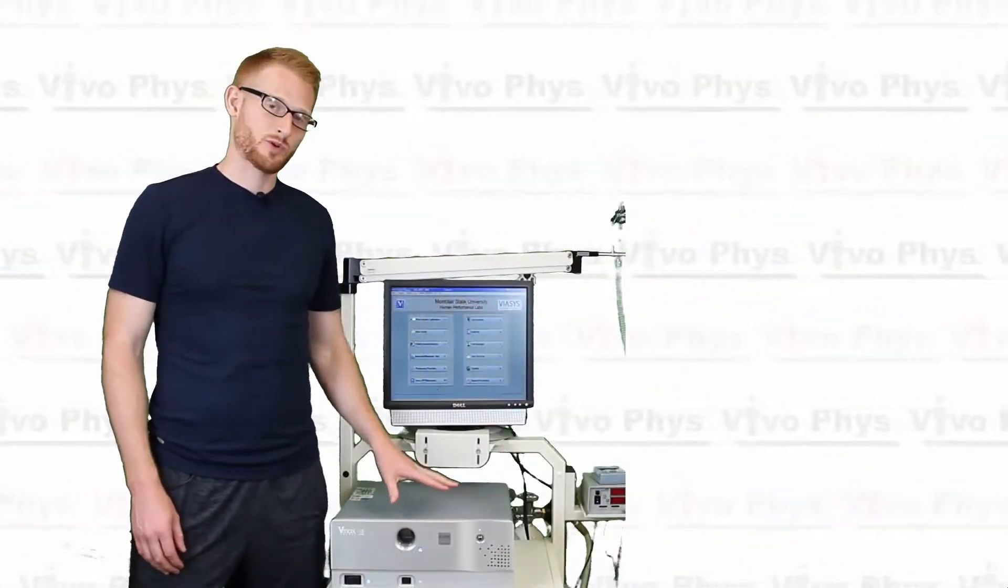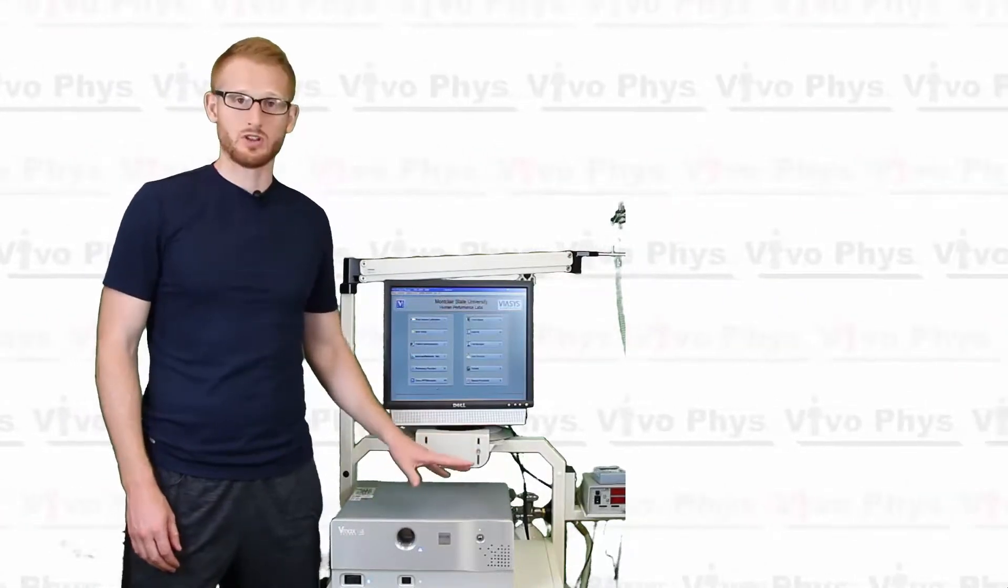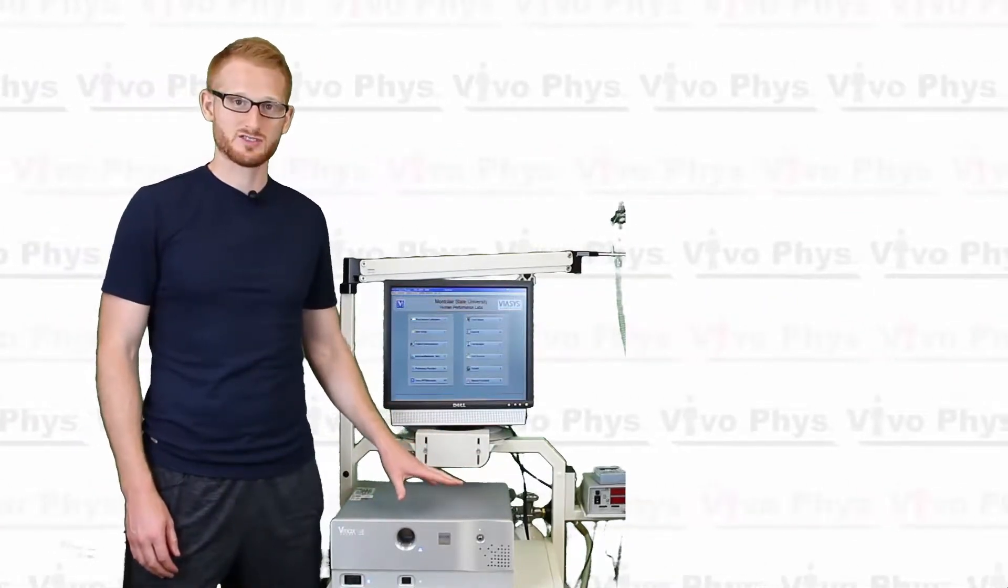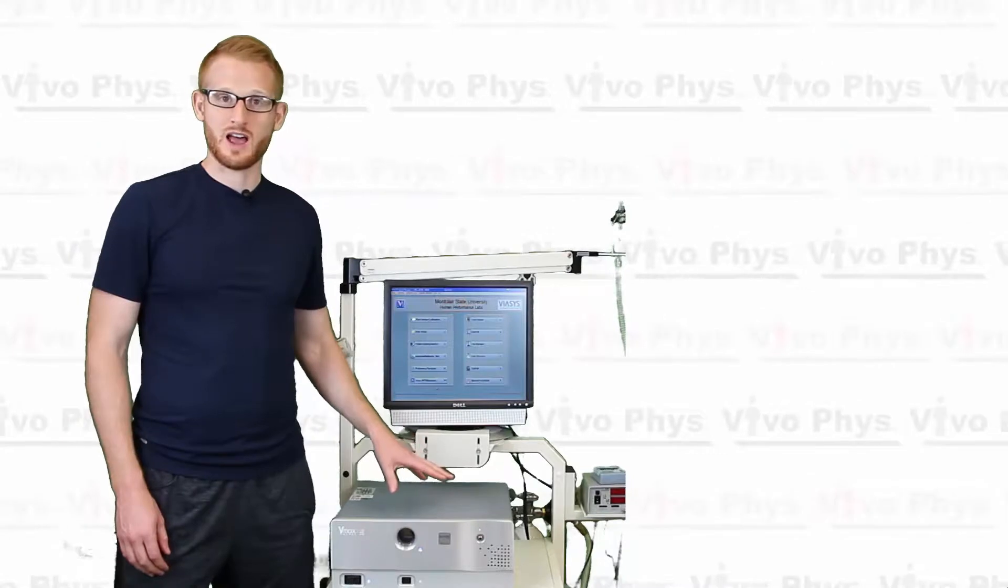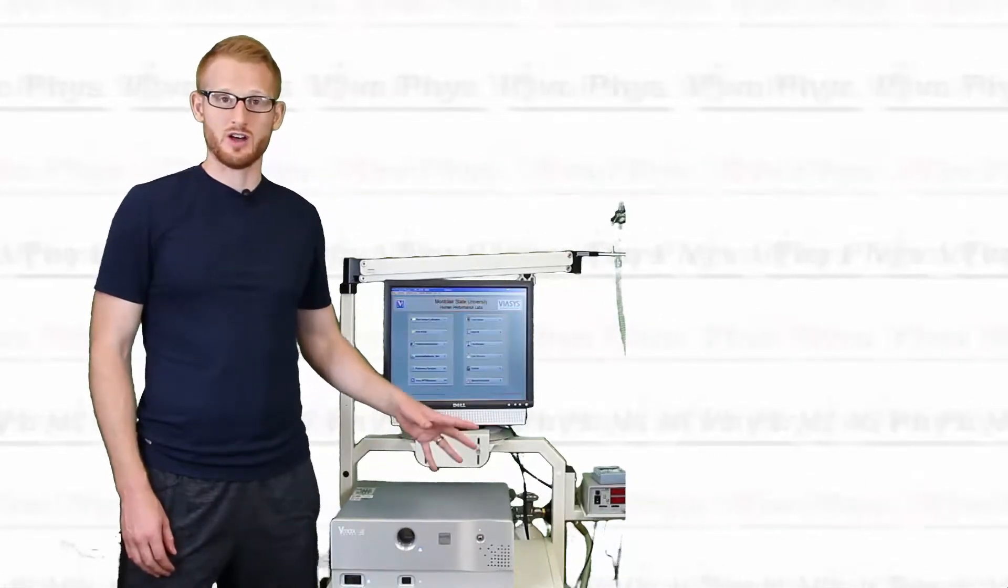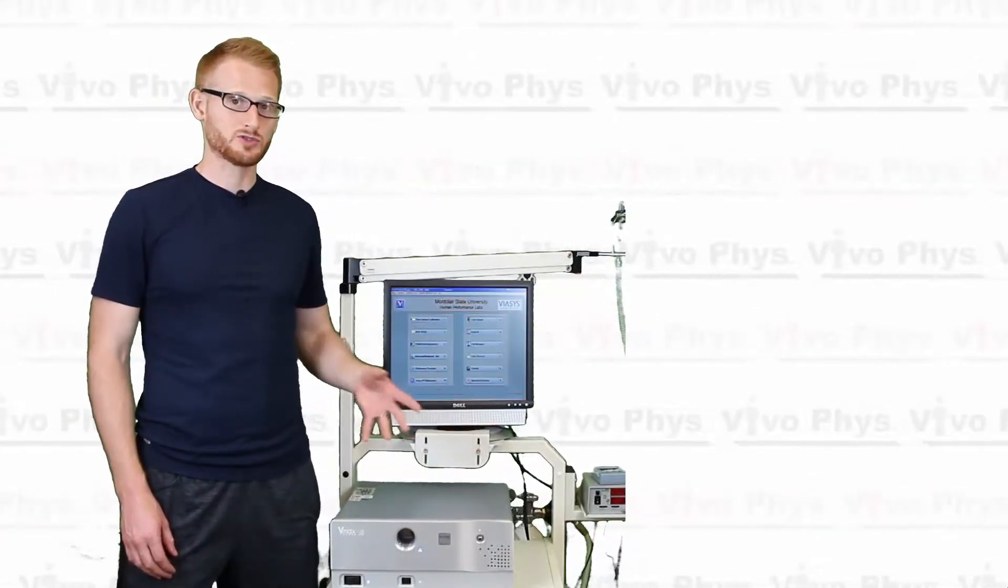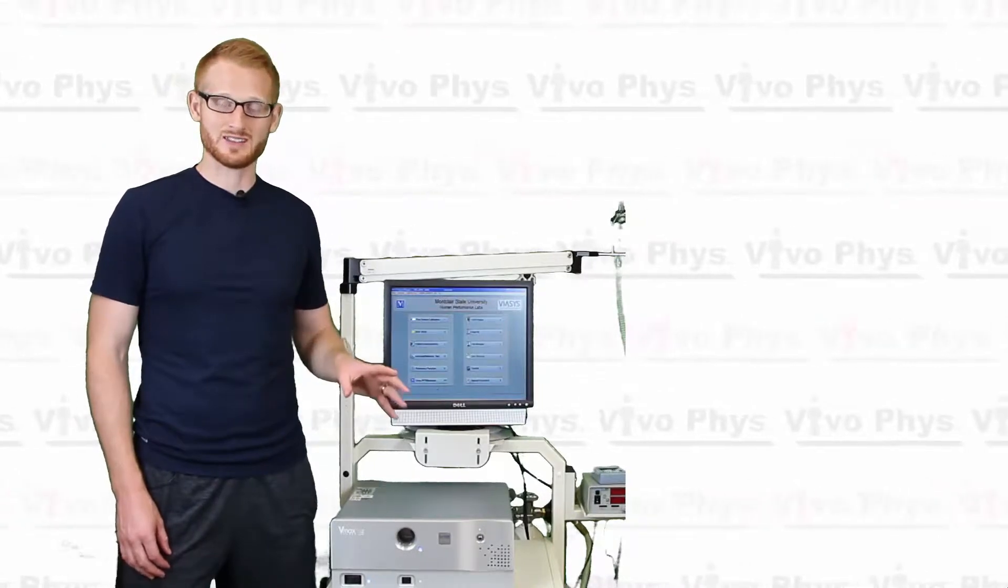Okay, so now that this system is warmed up for a full 30 minutes, it's actually been longer than that, more like 45 in this situation. We now need to do the calibration of the flow.